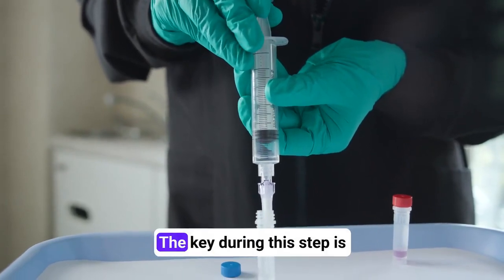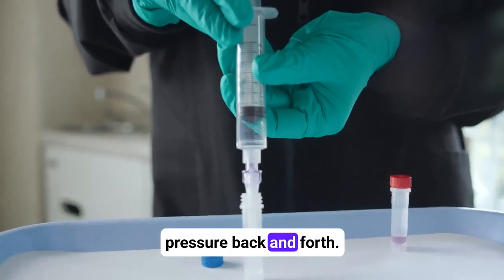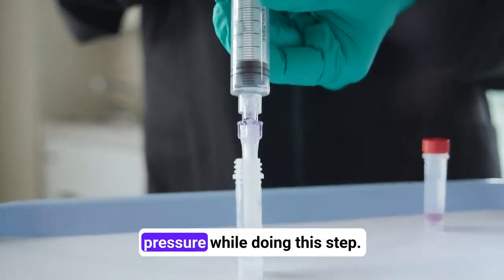Pro tip! The key during this step is pulling and pressing the syringe plunger slowly with light pressure back and forth. You should feel a little pressure while doing this step.